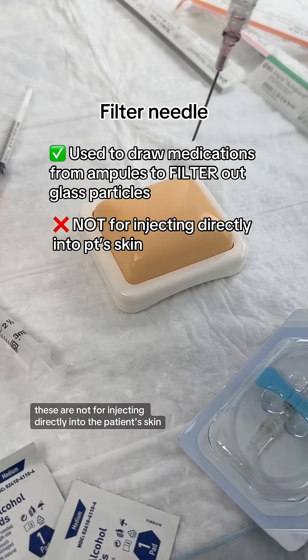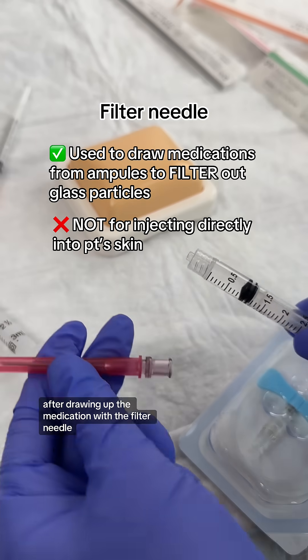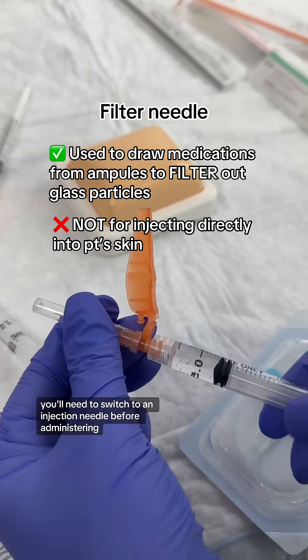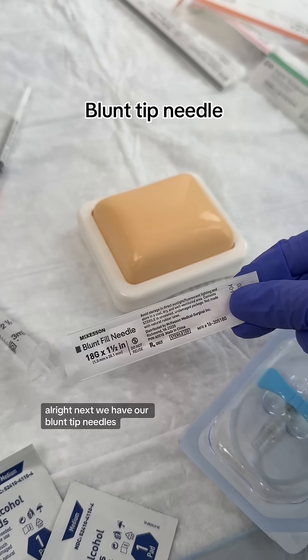These are not for injecting directly into the patient's skin. After drawing up the medication with the filter needle, you'll need to switch to an injection needle before administering.